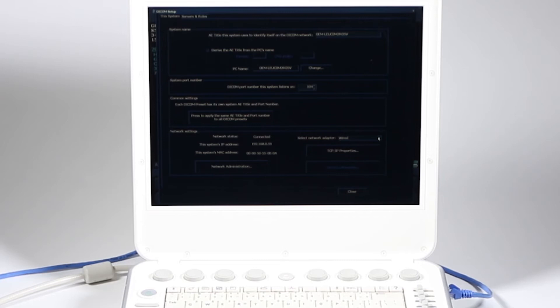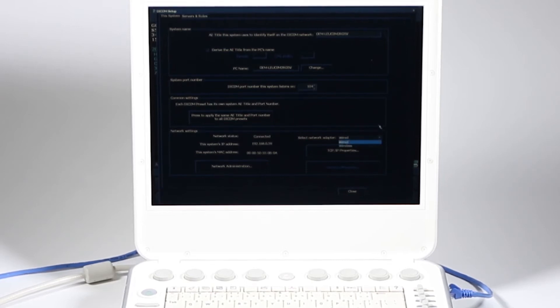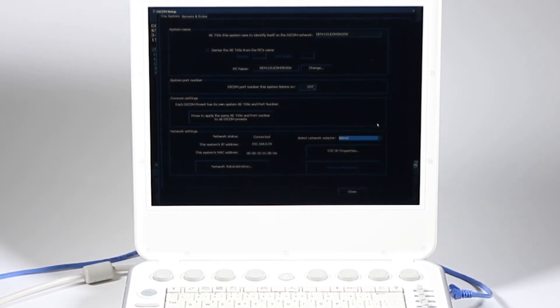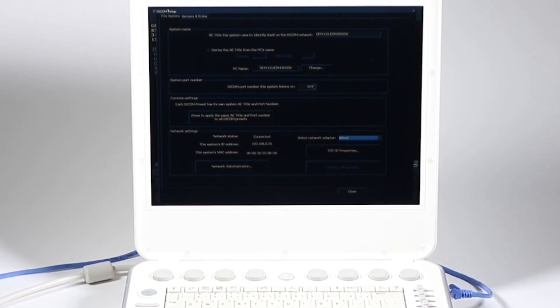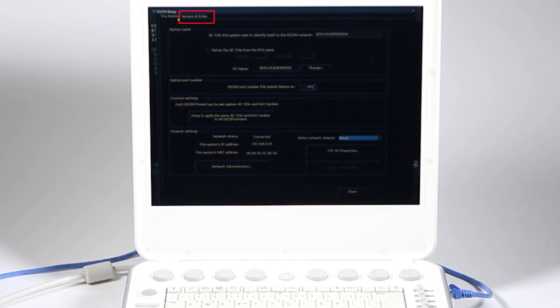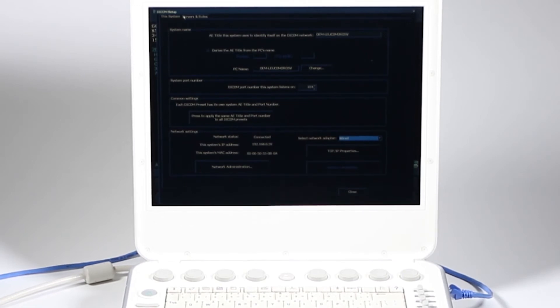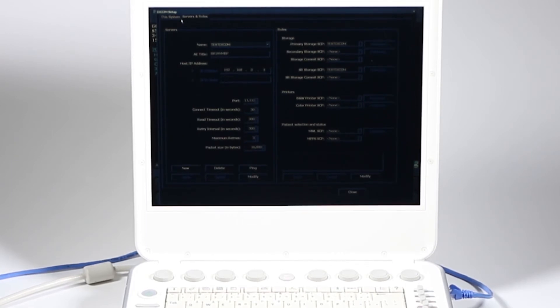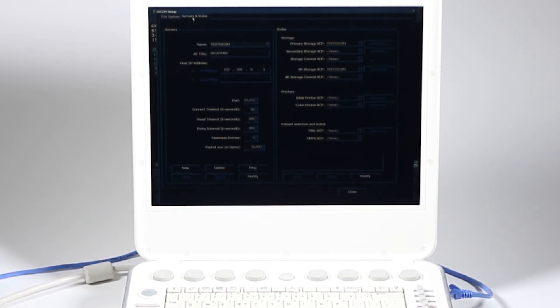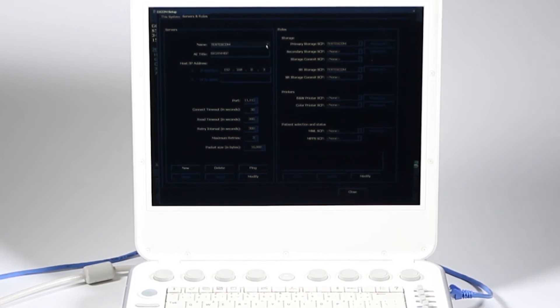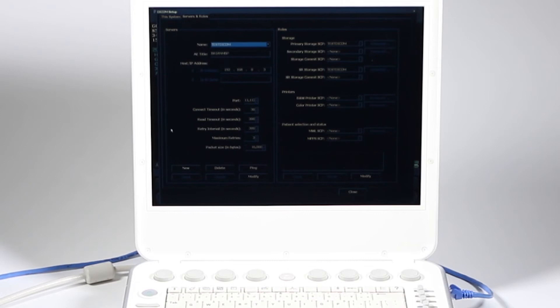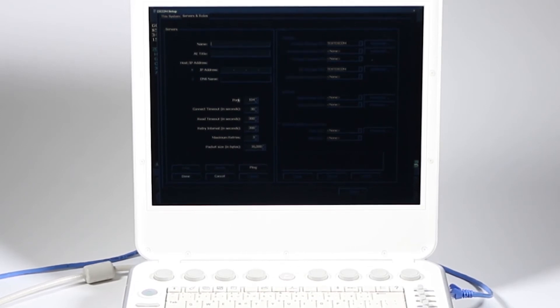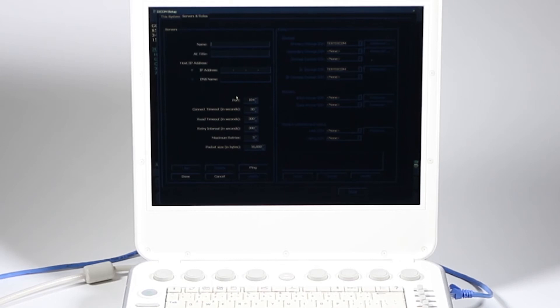If you purchased a wireless adapter, this is where you're going to select wireless from there. Up here at the top left, you see a tab that's going to say servers and roles. And it's going to look very complicated, but we'll get through it. Here I've got my servers. And now this jumped straight to that test DICOM. I don't want that. I want to create new.